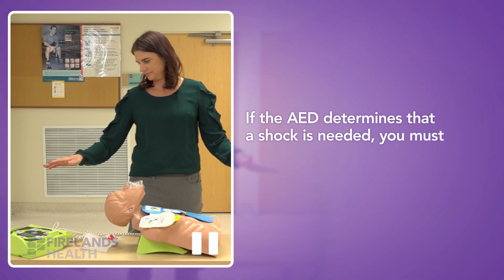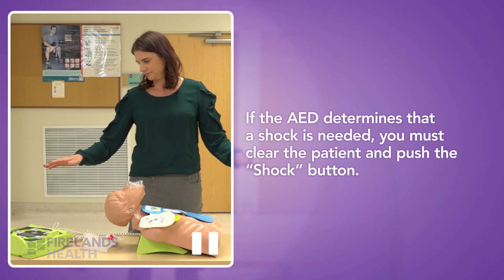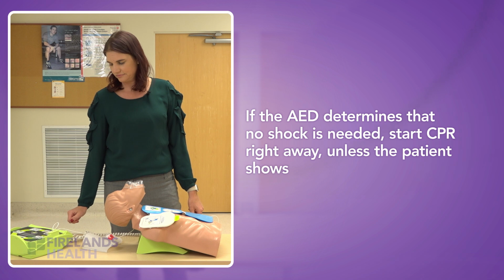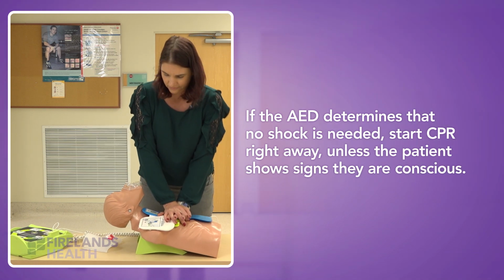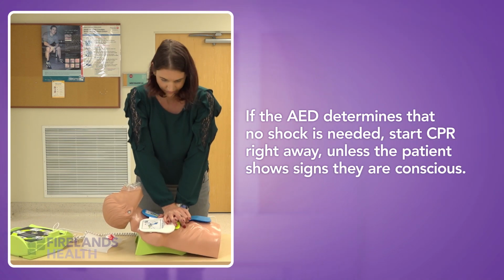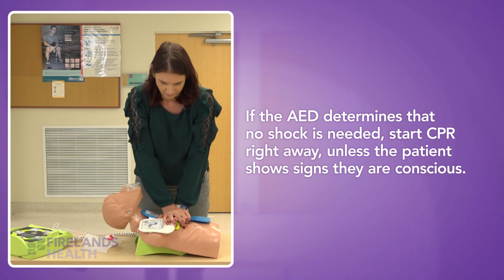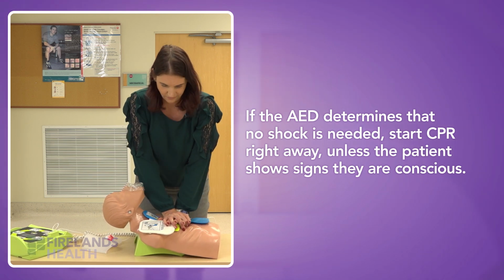Once the AED has determined that a shock is needed, you will need to clear the patient and push the shock button, which should be highlighted on the AED. If the AED says no shock is needed, you should start CPR right away, unless the person speaks or sits up or shows signs that they are conscious.